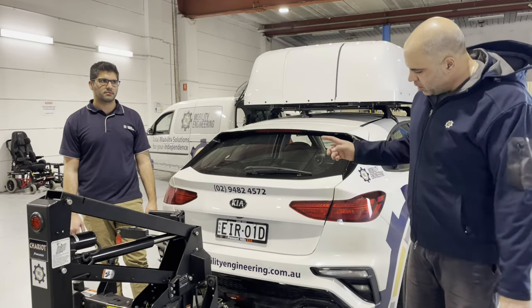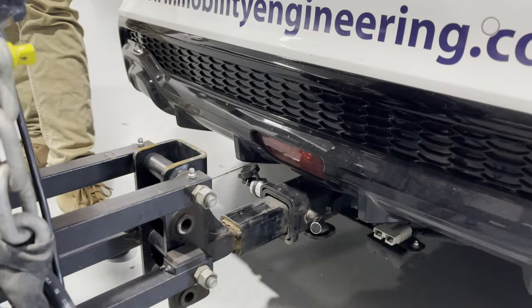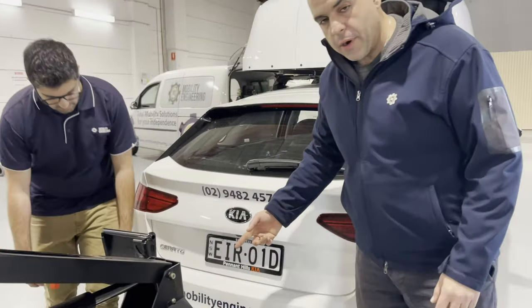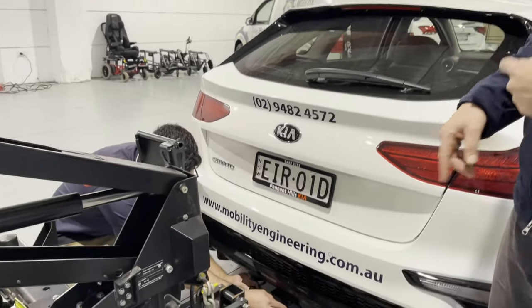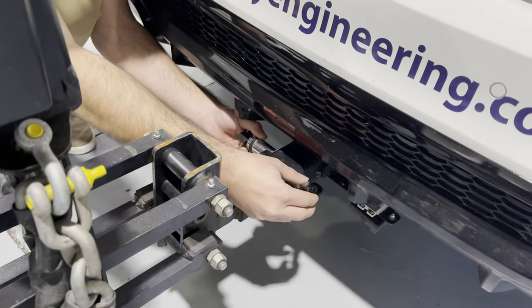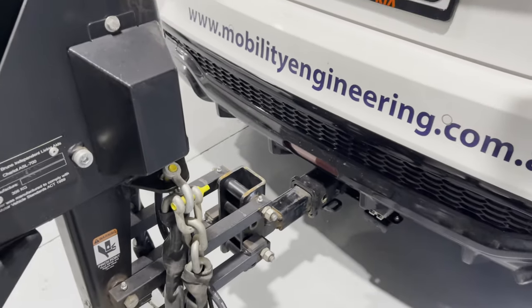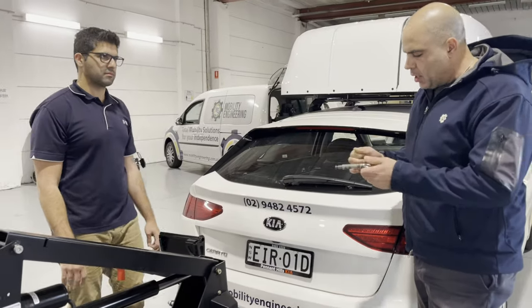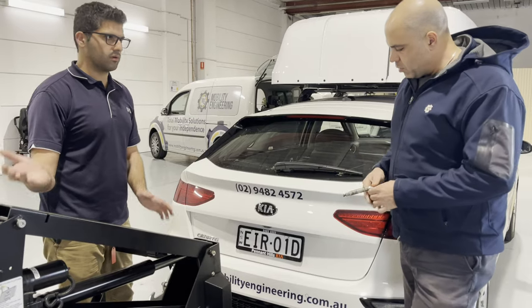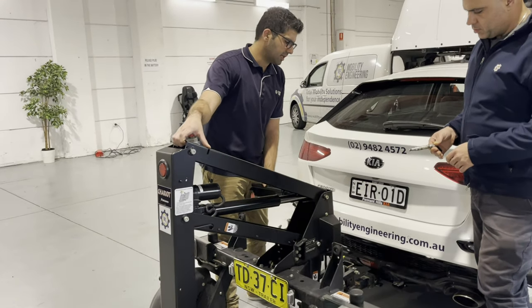The next step is removing the pin from the hitch — one of the final steps before disconnecting. You'll see a silver or chrome-colored safety pin on the hitch. Earlier generation models had a different color or a split pin, while the new generation ones come with a key-operated lock. We always recommend upgrading to the key-operated lock, as it stays on reliably and can't break like split pins. Remove the lock and pull the pin out. Sometimes it might be stuck with debris — a small hammer tap can help. Lifting the platform weight off the vehicle also makes removing the pin easier.